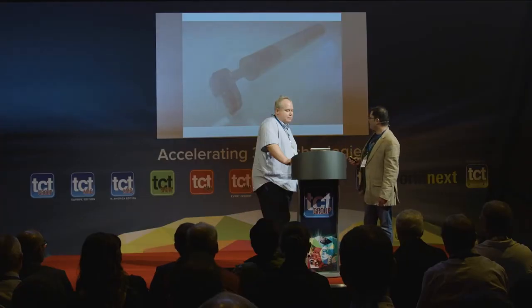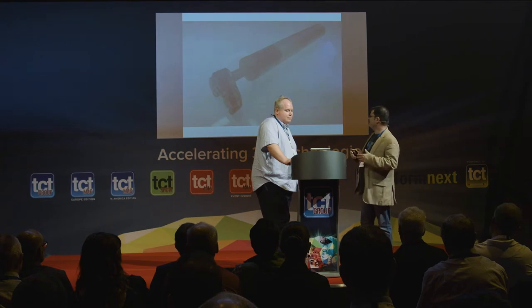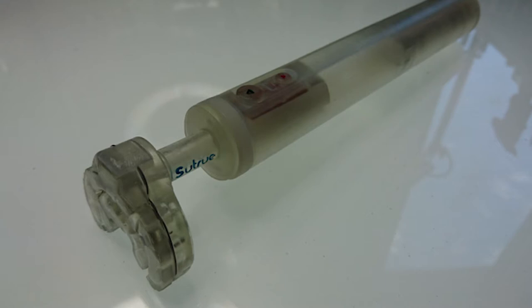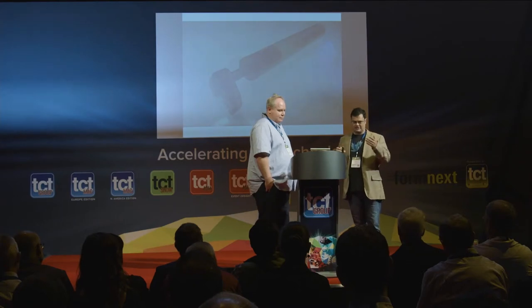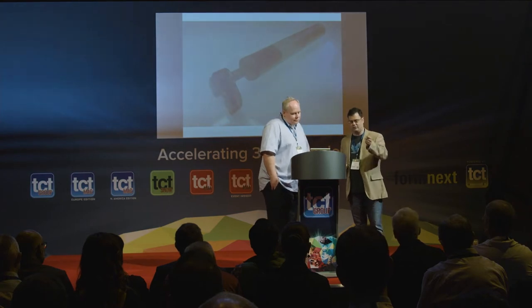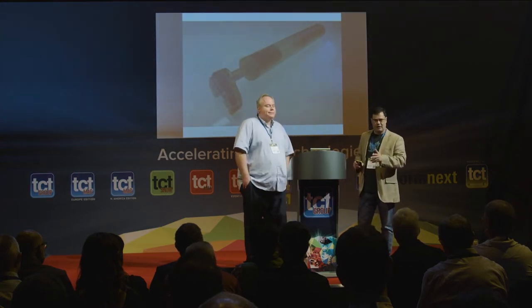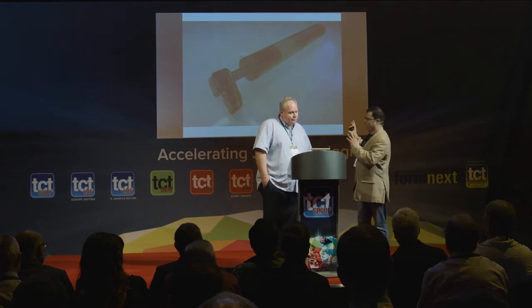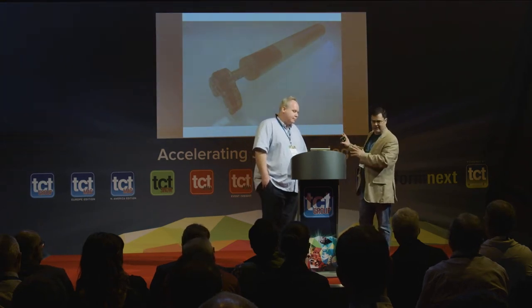This is now our core size benchmark device. This is what we have for most of our testing. And the example we have with this is that in comparison to doing suturing by hand, the forces that we can generate behind the needle with this device are approximately twice as much. So for studies that have shown how much you need to be able to turn a needle to put it through tough soft tissue, this device now can power it by the press of a button with twice as much force. All using additive manufacturing techniques for all of the components.